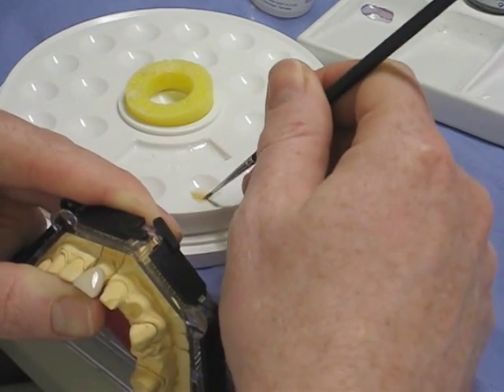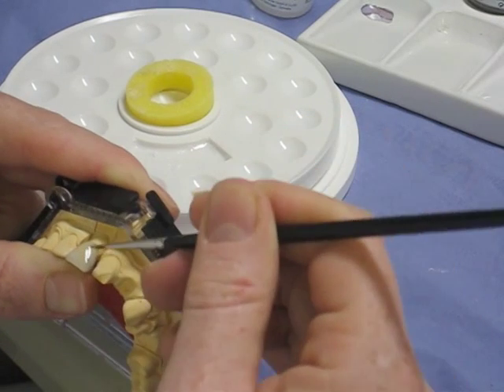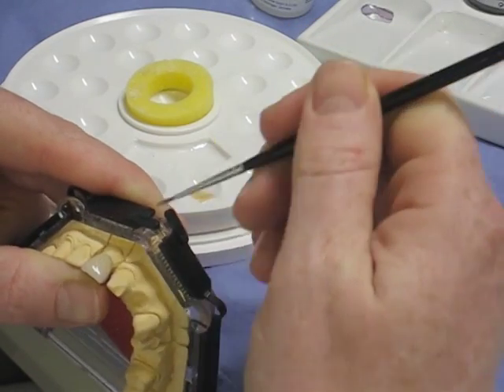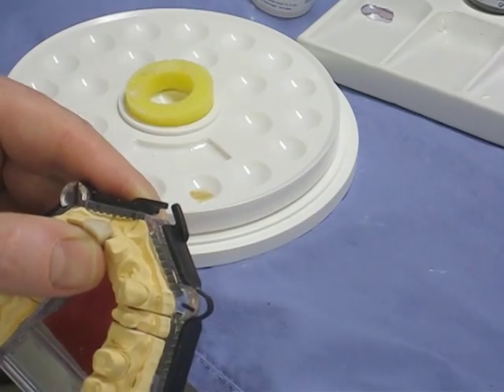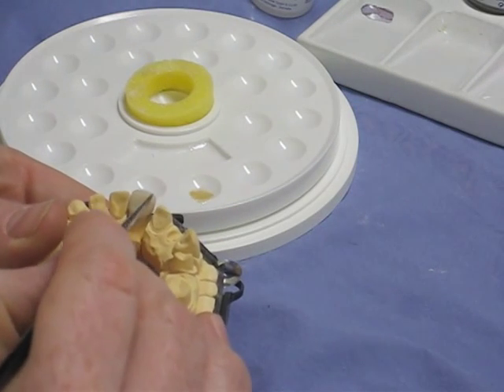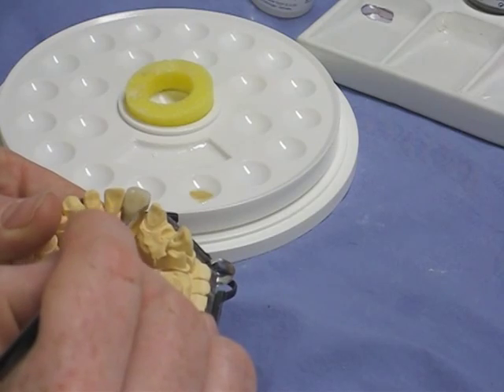You're just putting the stains on into the glaze as it's wet on the crown — you sort of puddle it in and slosh them about a bit. It's easy to overdo these stains, so you want to be quite careful. They're not overly visible in the glaze; you sort of paint it on and have to trust that you've put it there. It's easier if you're doing a self-glaze — you can see them more clearly. I'm just putting some on the back for a little bit of character.